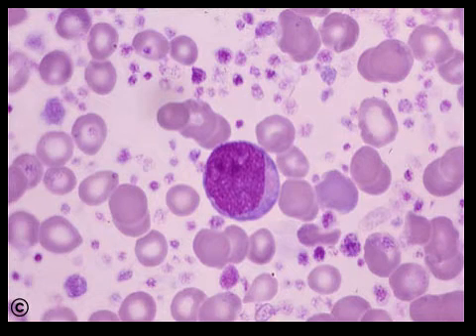Hi guys, so this video is going to go over different cells that I myself, as a student who took hematology, came across during lab. What I'm going to do is just show the slides and then I'll tell you the names, so that way it's easier for you to recognize, study, or review for lab practicals, or for learning or remembering for identification.